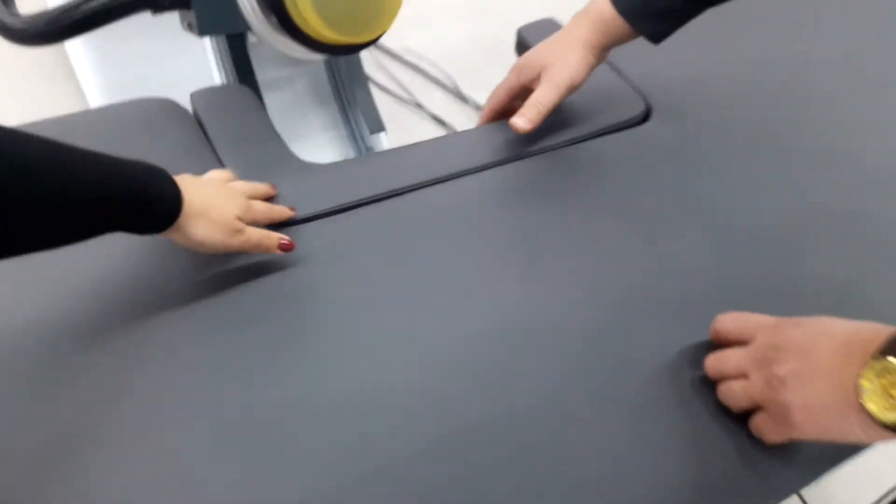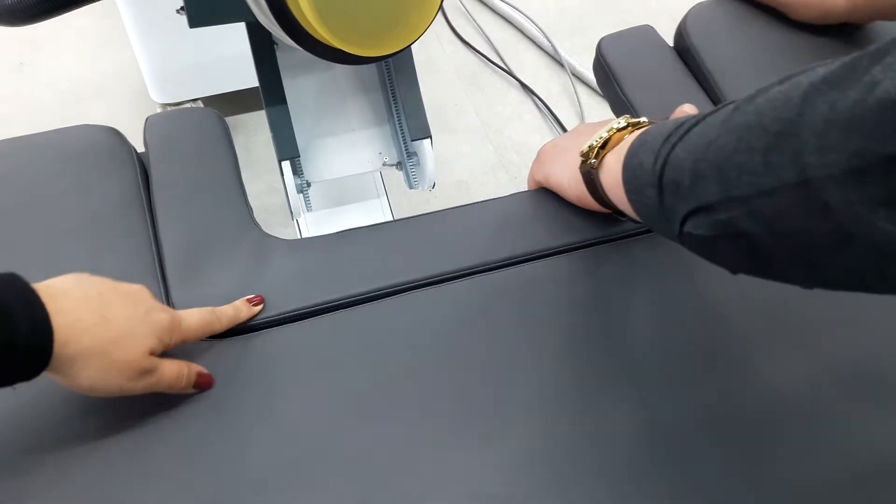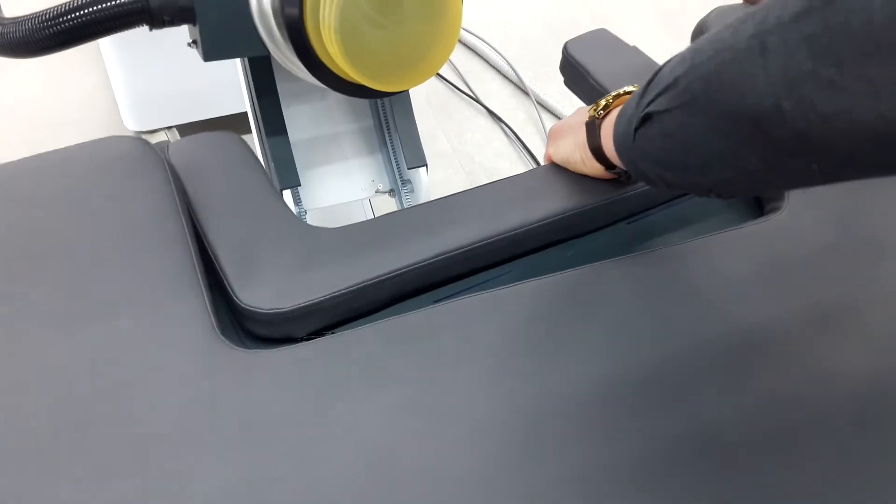As you can see, there is a special part for kids. If you want, you can remove that part.